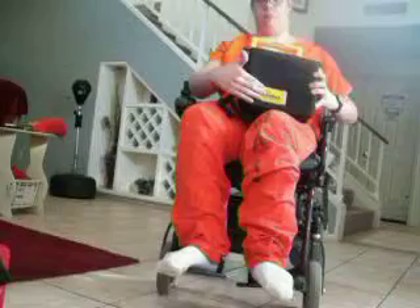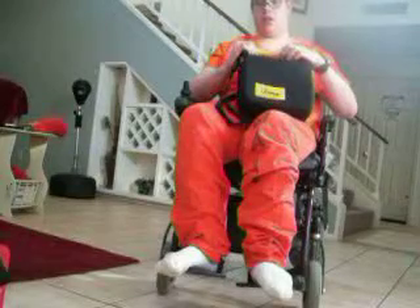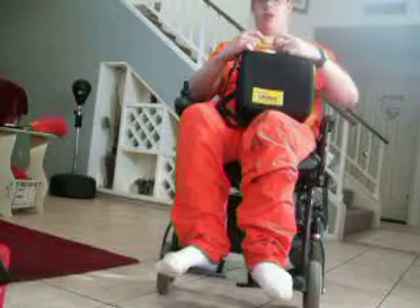Here's the outside. As you can see, it comes in a black case with a yellow reflective LifePak logo on the bottom left-hand corner. Up here, it's very hard to see, but there's a status indicator because this device runs self-tests on a regular basis every day. If anything comes back in question, right now there are two squares inside. If it's a battery issue, a little battery symbol will come up on one side. If there's an error, a little error symbol comes up on the other side. I got this for $95, very cheap for a defibrillator.